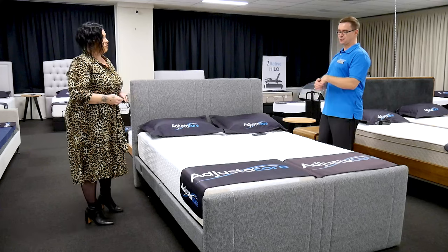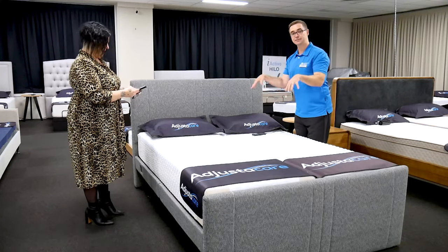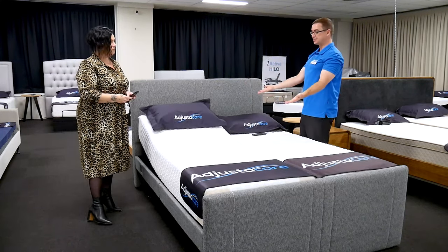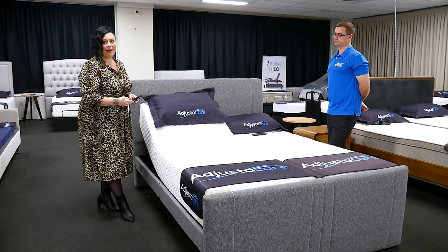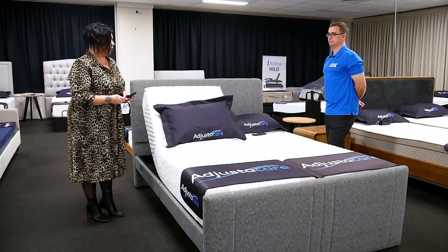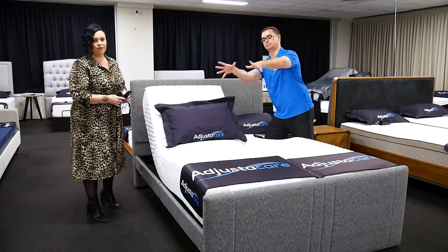I raised before we started filming the question of how to safely fit sheets without getting into an awkward position trying to tuck. There's a great solution: elevating the head all the way and elevating the feet eliminates the need for pulling on a tight sheet. You can see that if Scott gently kneels on the other mattress, he can easily get a fitted sheet into that corner.